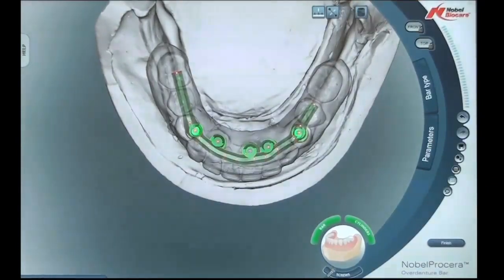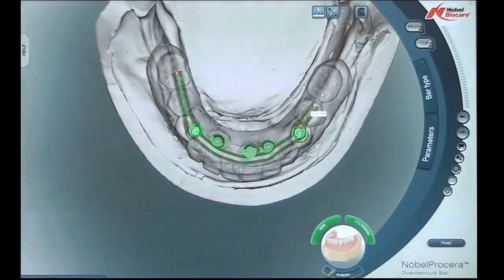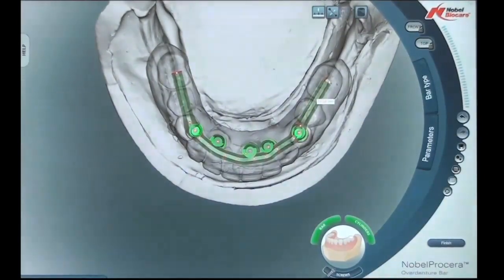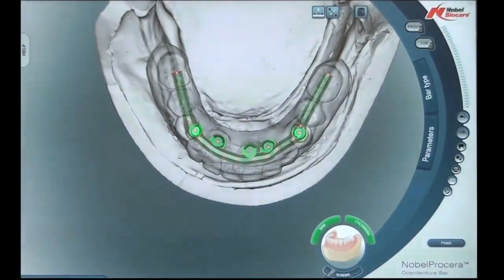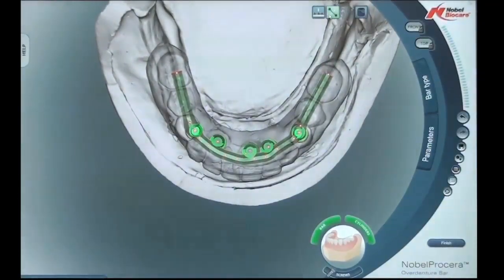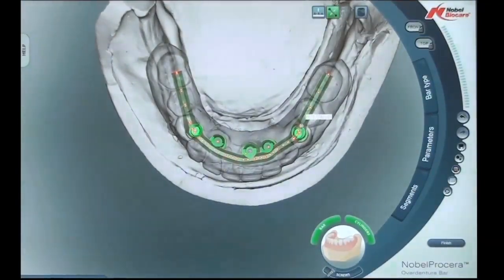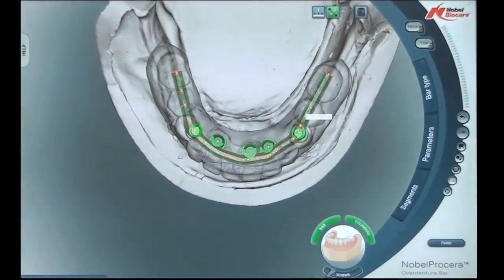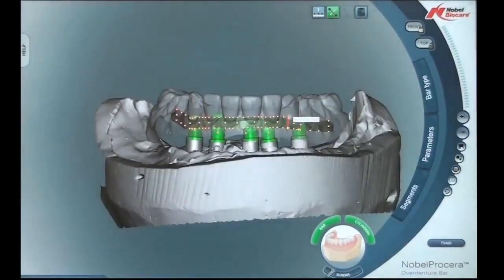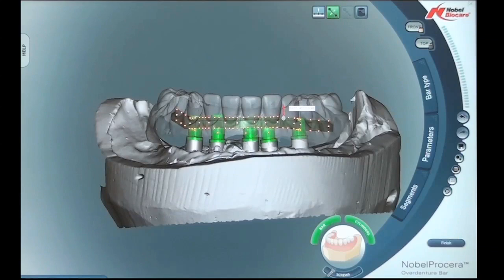Depending on the AP spread of the implant position, that will determine the cantilever length of the bar distal segment. In this case we're trying to achieve first molar occlusion, so I want to extend the bar distally to at least the two-thirds position of that first molar in length. This will allow us to support the denture teeth underneath the bar correctly. We're also able to click on the bar and move it buccal or lingual — we want the bar to be slightly in lingual version relative to the teeth so there's plenty of room for the denture teeth to be cut in around the bar.